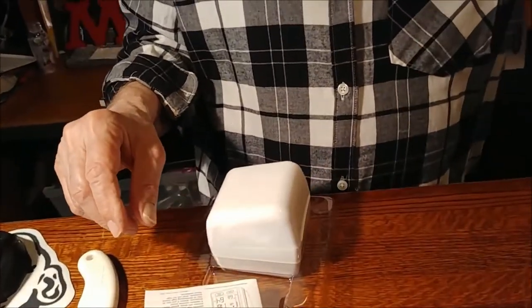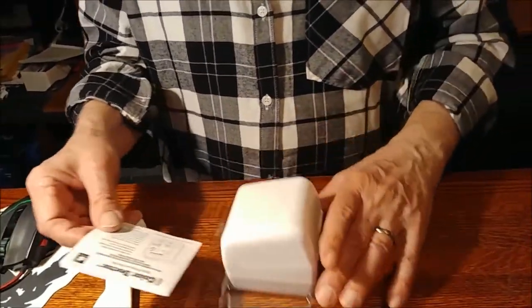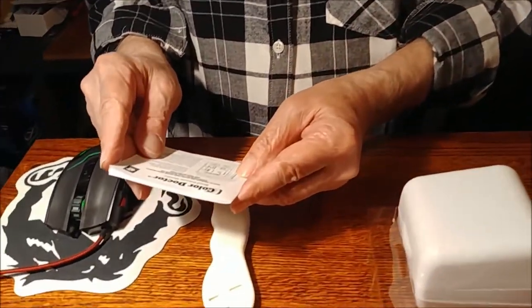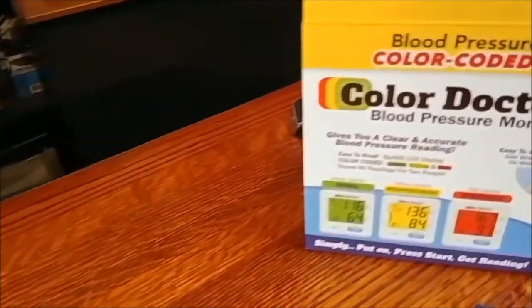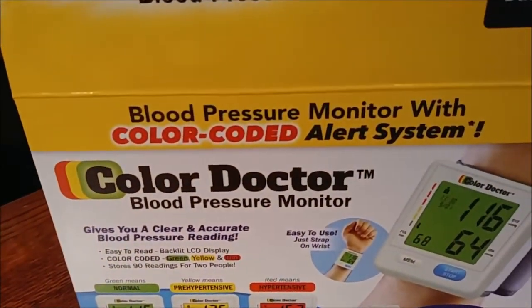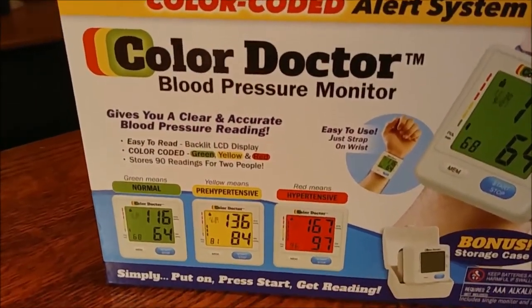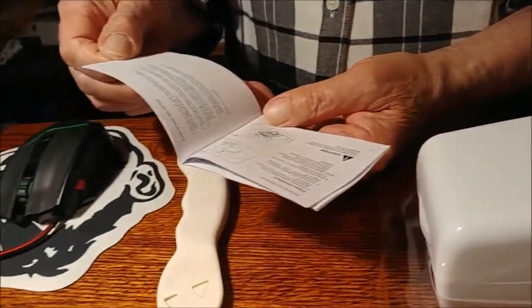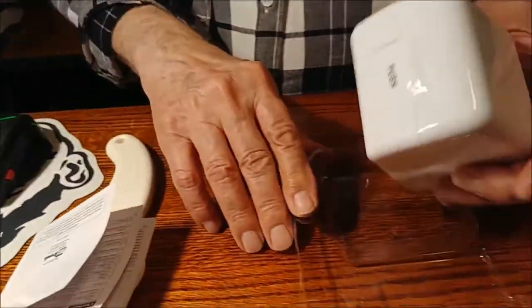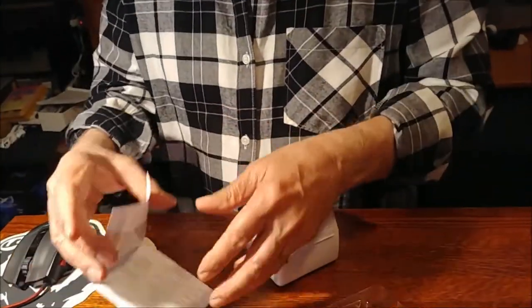All right. So let's see what we need here. Color Doctor. Easy to use. Portable. And then you need an optical. I can't read it to tell you the truth, even with my magnifiers. Can you read that? No.